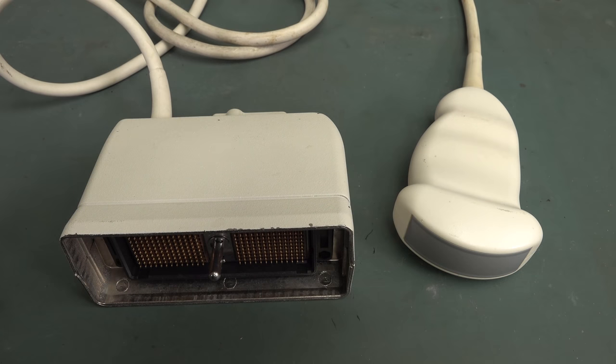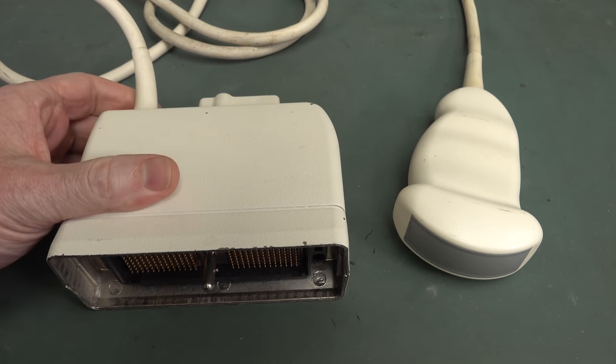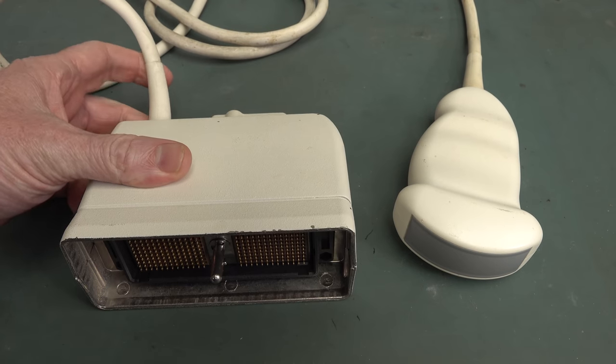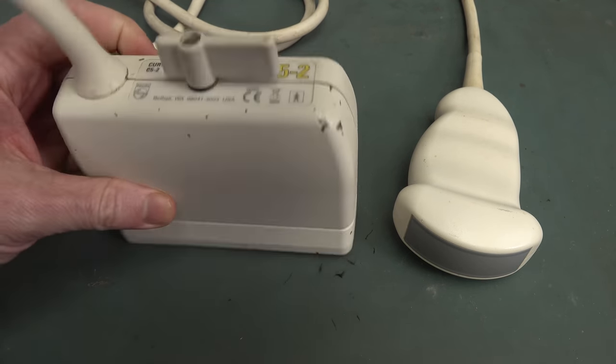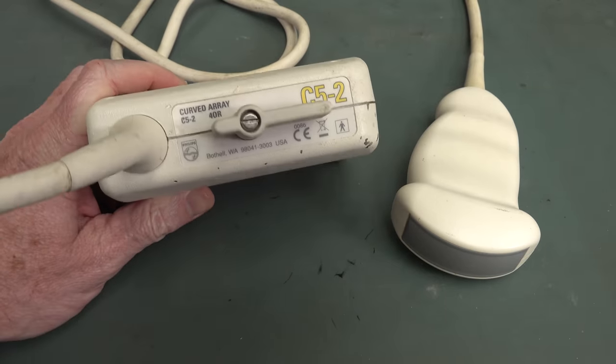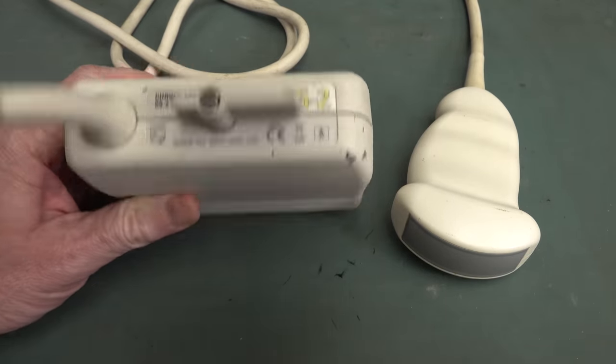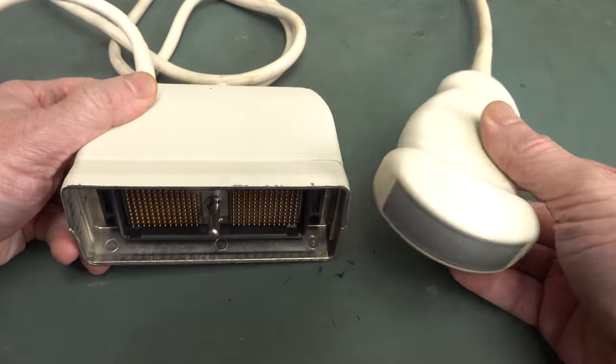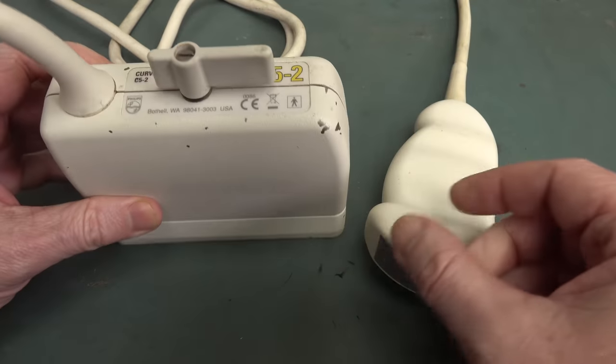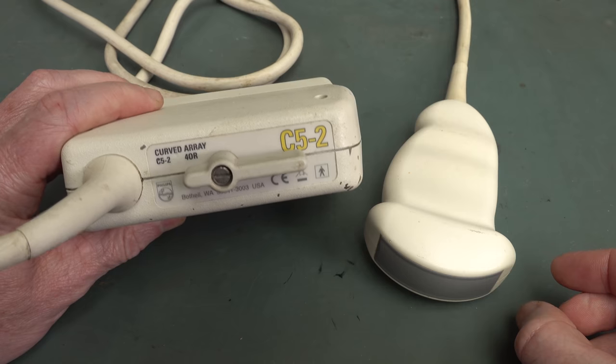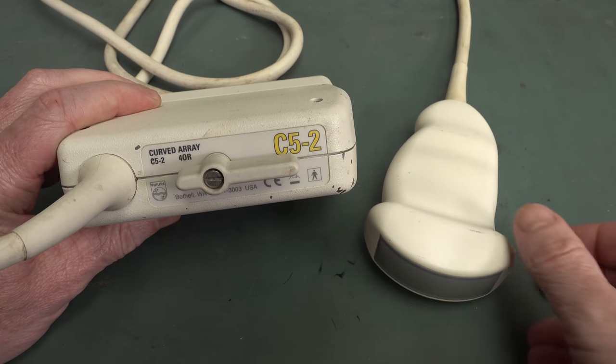Hi, this is a follow-up video to my previous one where I tore down an ATL/Philips ultrasound machine. That was a pretty epic video, almost 50 minutes long, so I'll link that in at the end and down below if you haven't seen it. But I promised that I would take a look at one of these ultrasound probes, so let's try and tear this thing apart to see what makes one of these tick.